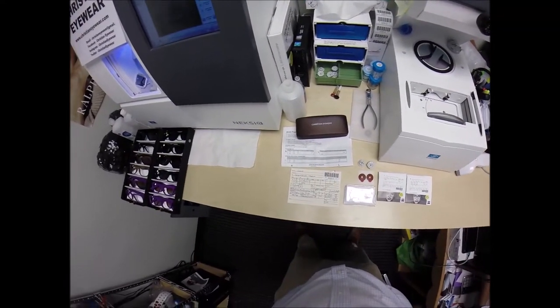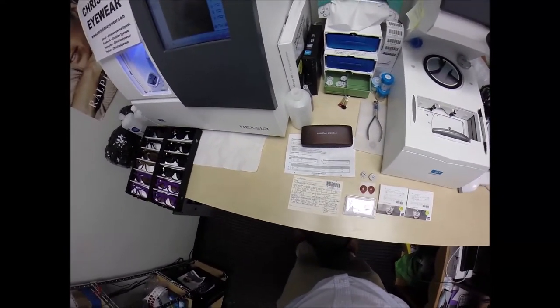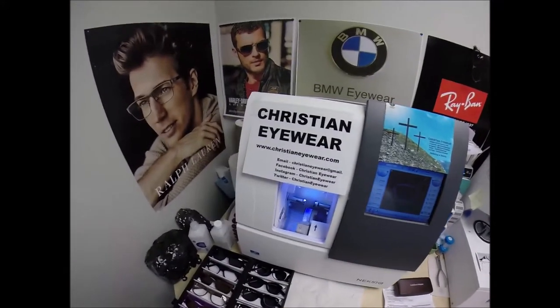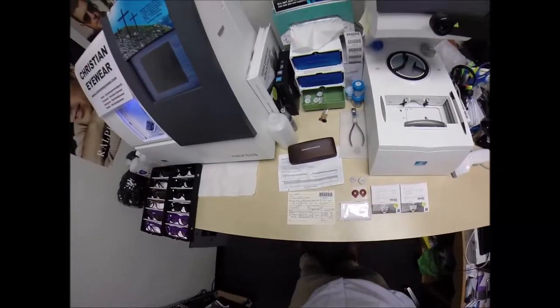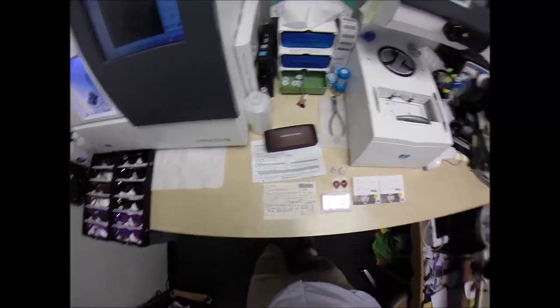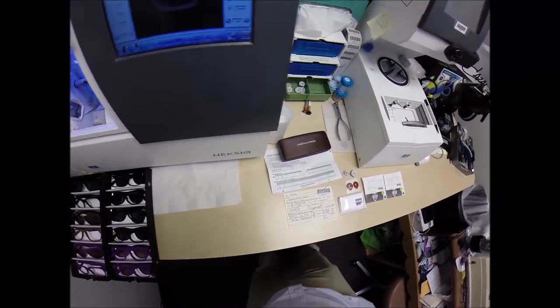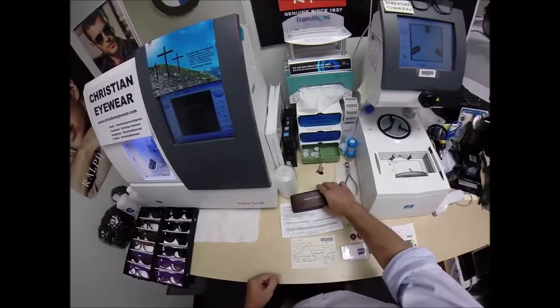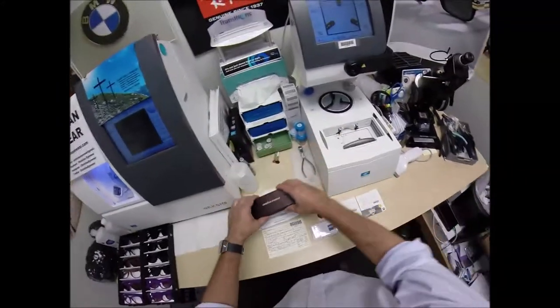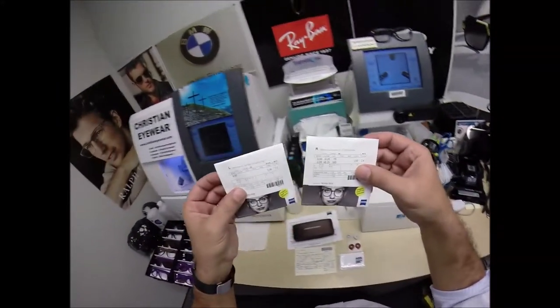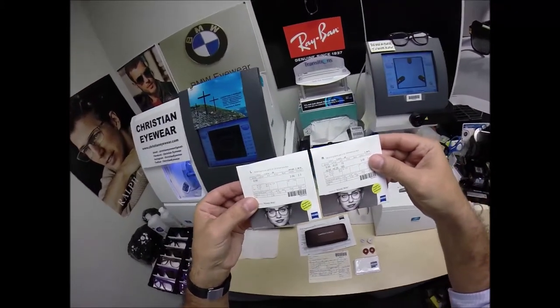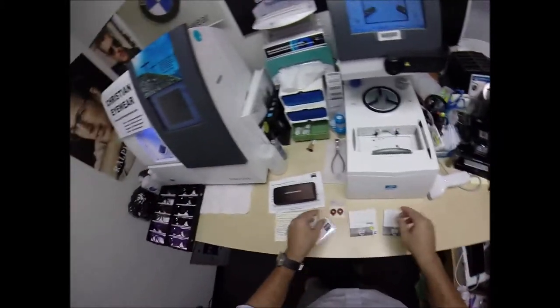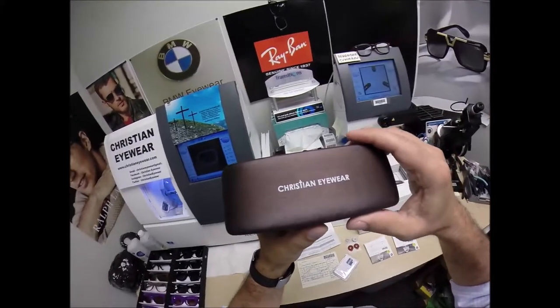Jamie in Corpus Christi, Texas, which literally translates to Body of Christ. See more better here with ChristianEyewear.com, but call me Mo, MoBetter, because I'm having you seeing MoBetter, looking MoBetter, and showing everyone else how I bring God's love and feeling back to glasses. When I cut for you, it's going to be the Zeiss Light D Digital Freeform Progressive Lenses in the Photofusion Blue with DuraVision Silver Anti-Glare for your Christian Eyewear.